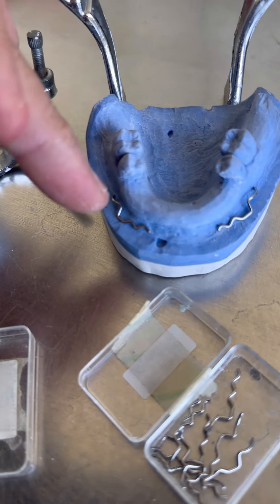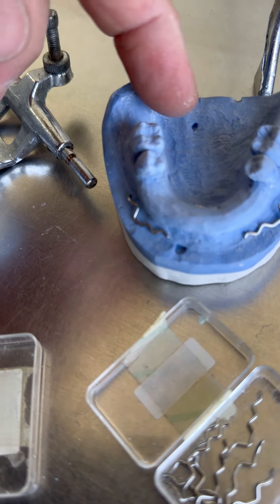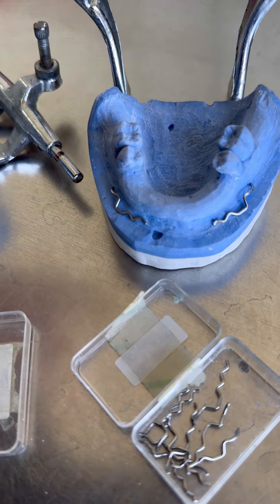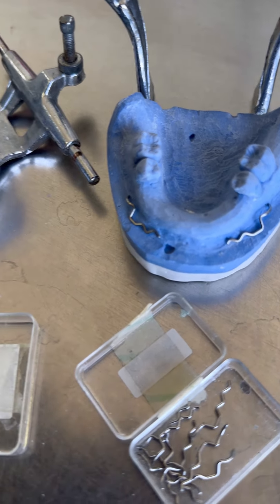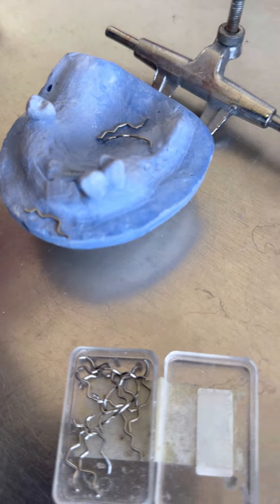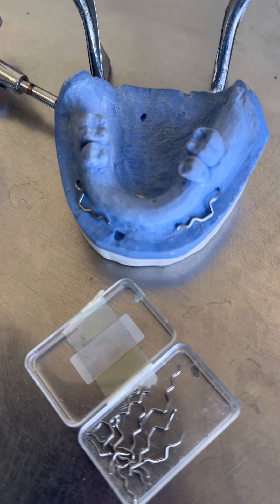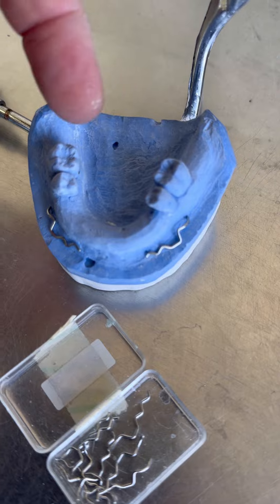И подобно с этими. На пятёрочке вот — левый, правый. Но на эти уже надо гнуть индивидуально, потому что зубов мало. Двух крючков здесь не хватит. Нужно, чтобы и с обратной стороны тоже были, чтобы протез держался. Хотя всё равно он будет плясать — ну, мы должны сделать максимально, что можем. Тут раз, два, три крючка. Здесь будет четыре крючка. Сейчас я их закреплю.